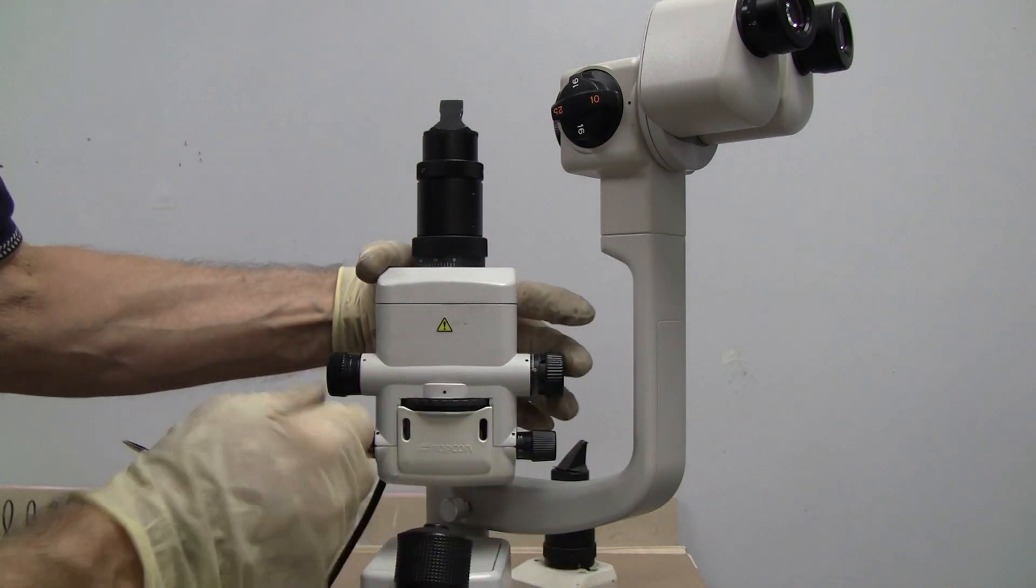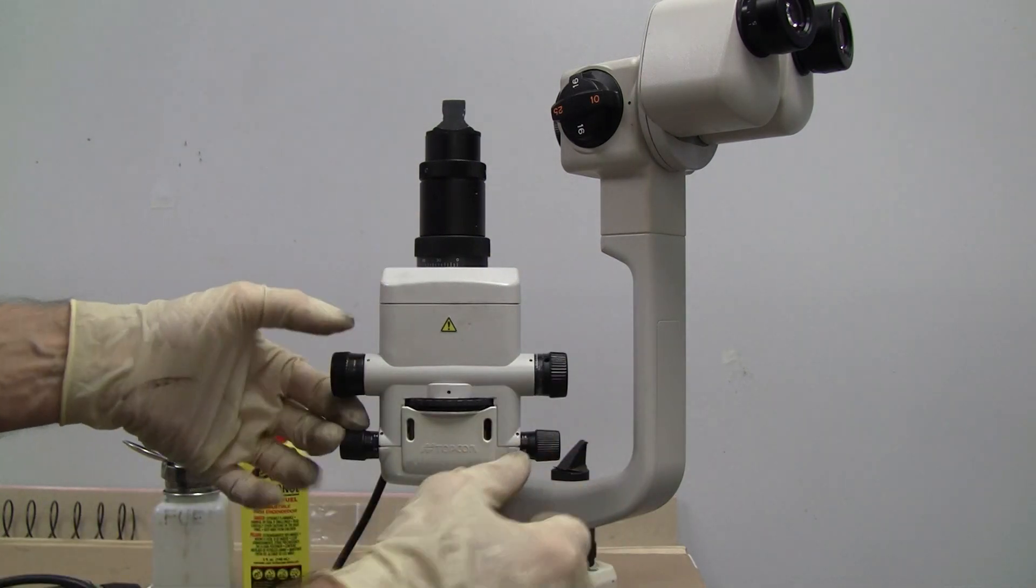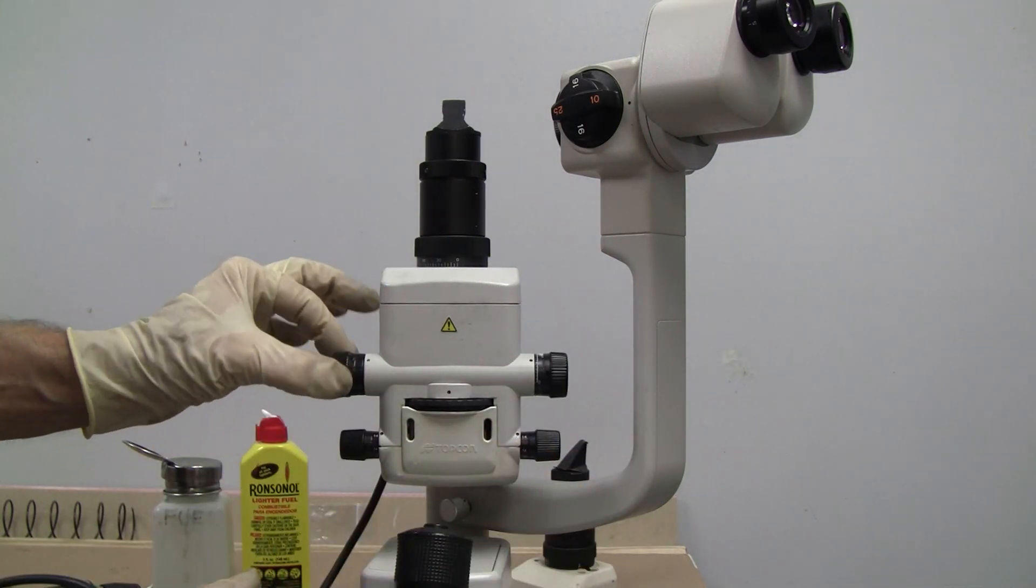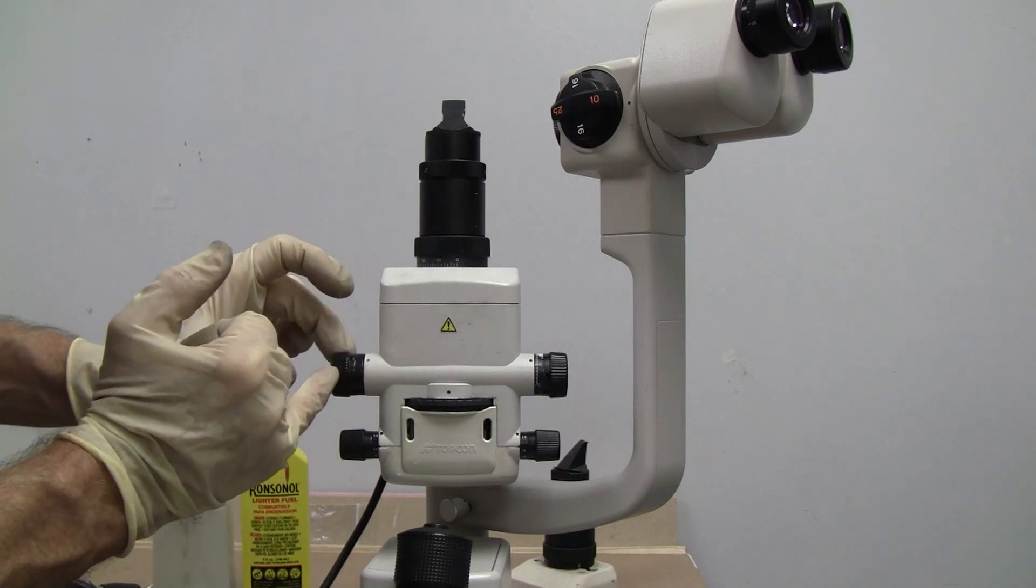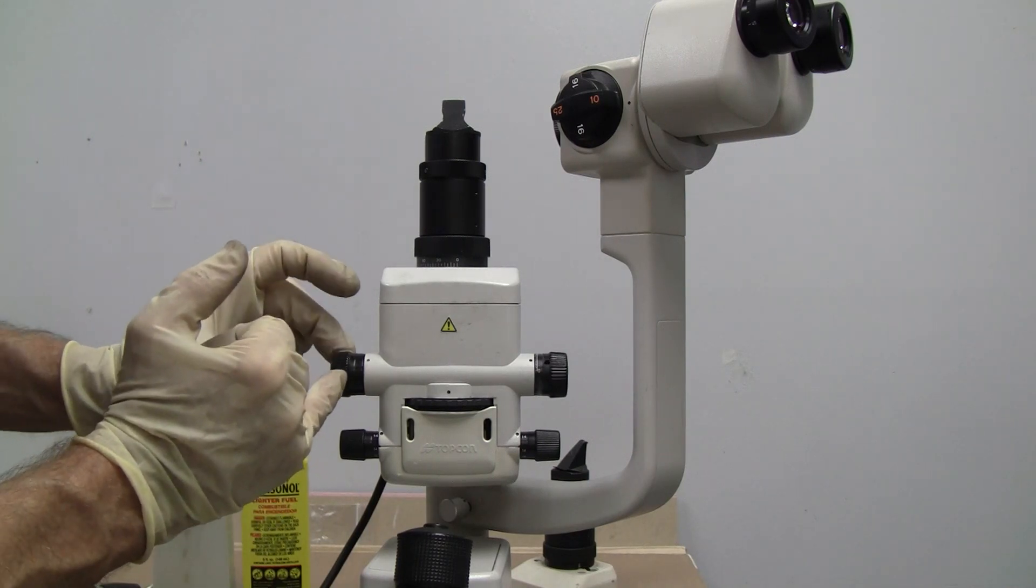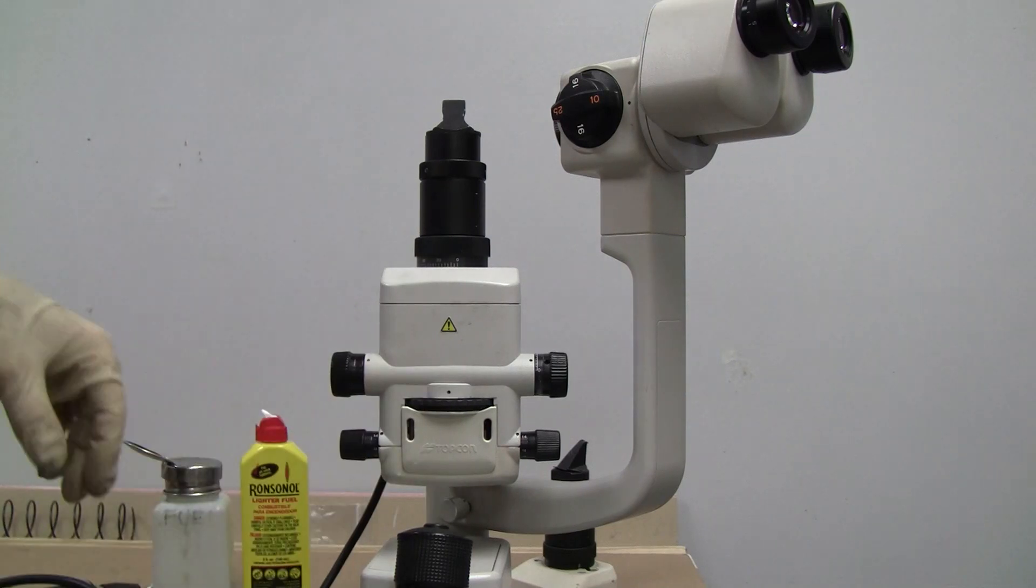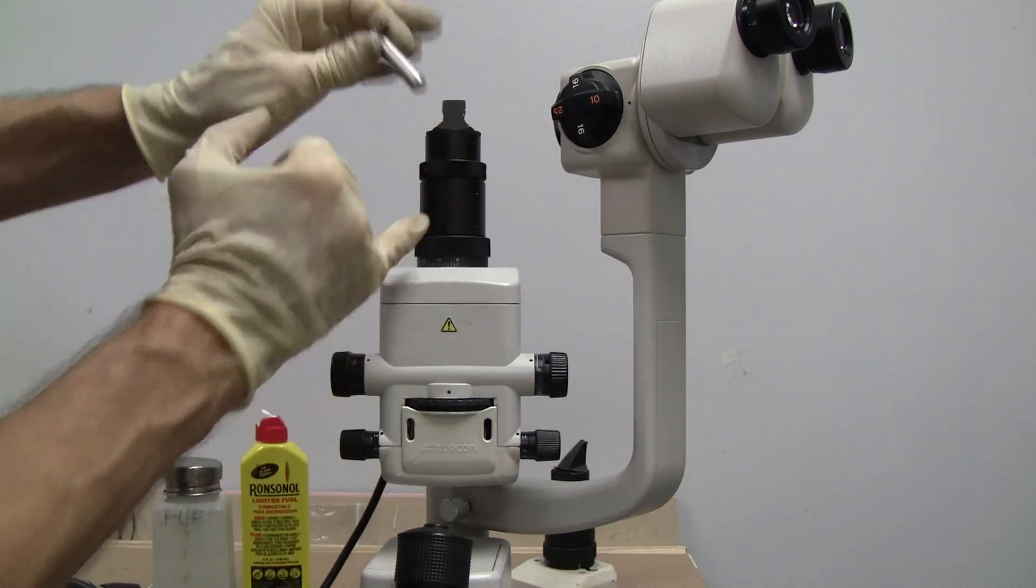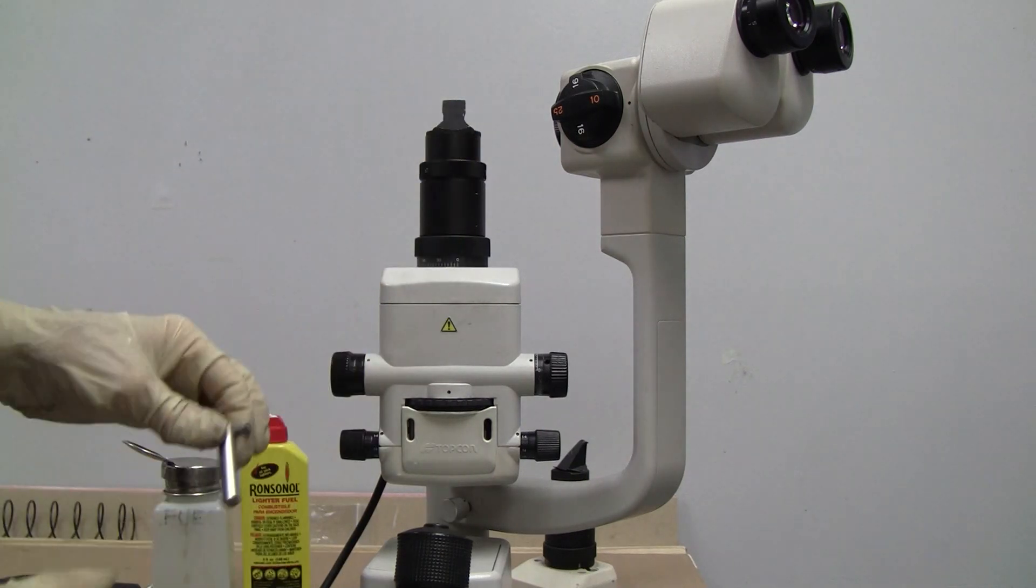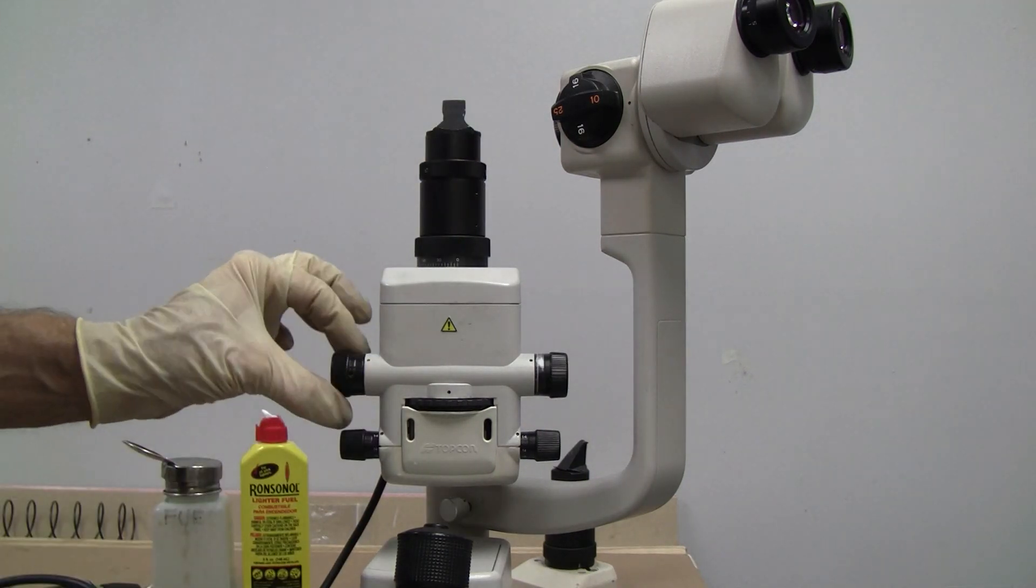So what I'm just going to do is, I'm pretty sure that's it because the gravity is now turning my knob to where it's at the very bottom, because the weight is pushing down. So I know that's going to be probably zero. So I'm just going to take a guess and put that at zero.